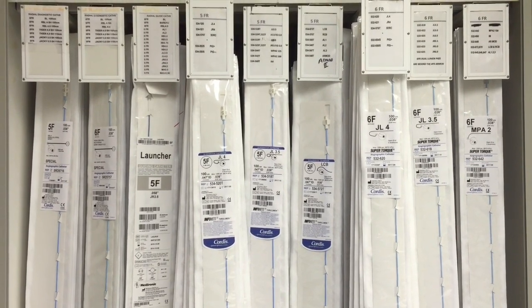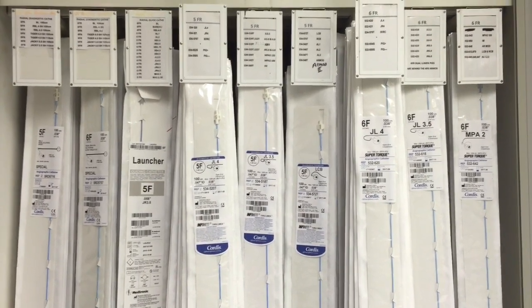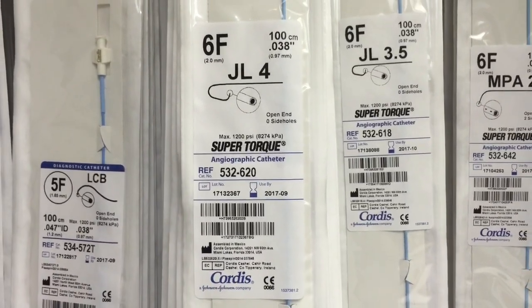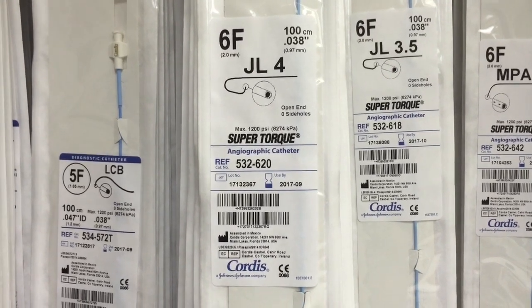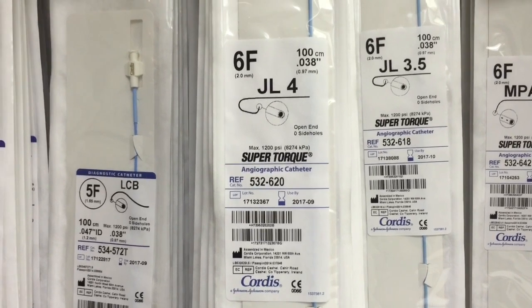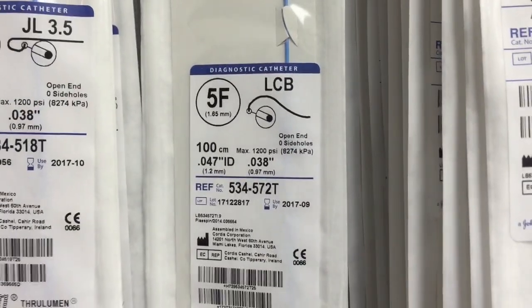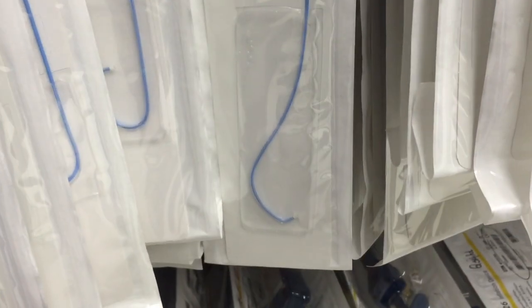This cabinet is full of catheters — almost all diagnostic, though there are a couple of guiding catheters as well. They're all five and six French. Here's a six French JL4 — probably one of the most widely used catheters. JL4 refers to Judkins Left, four-centimeter curve. Over here is a six French MPA2, a very specifically tipped catheter, very different from the JL4. And here is a five French LCB catheter — LCB stands for Left Coronary Bypass catheter. All these catheters have very specific uses, as you can see from the tip differences.